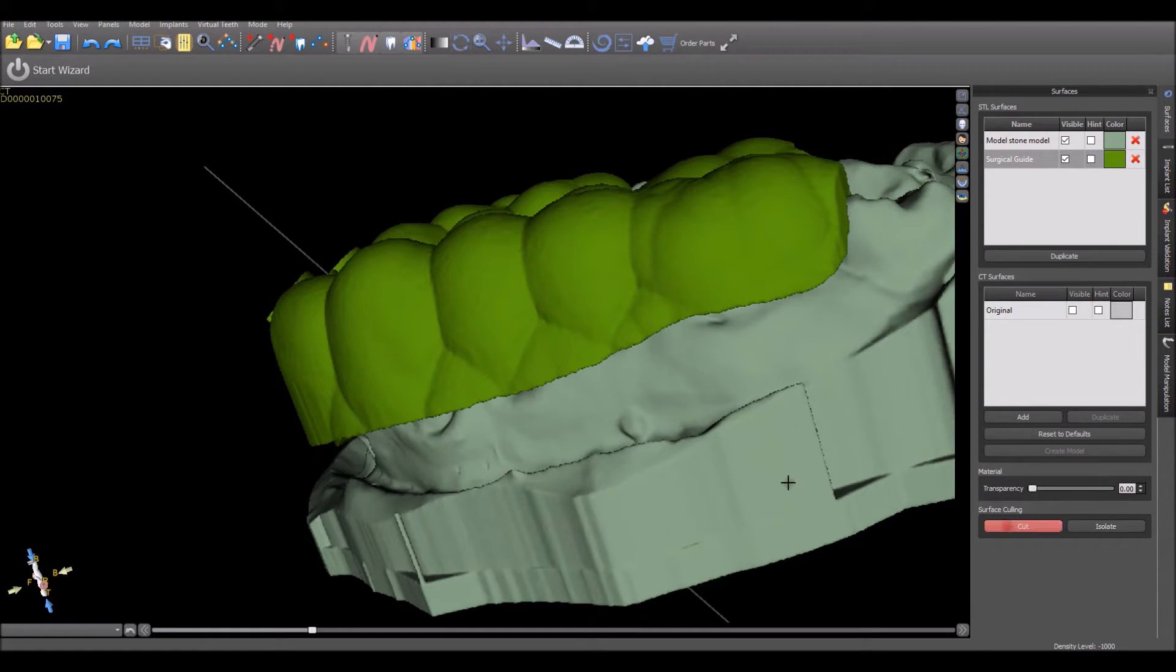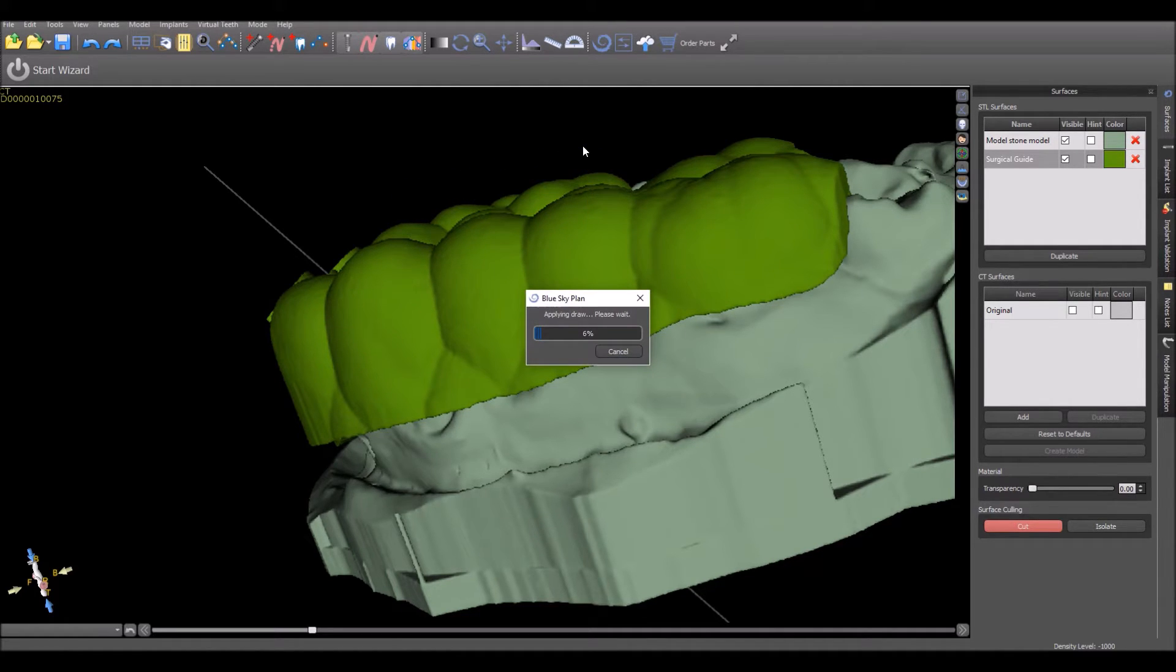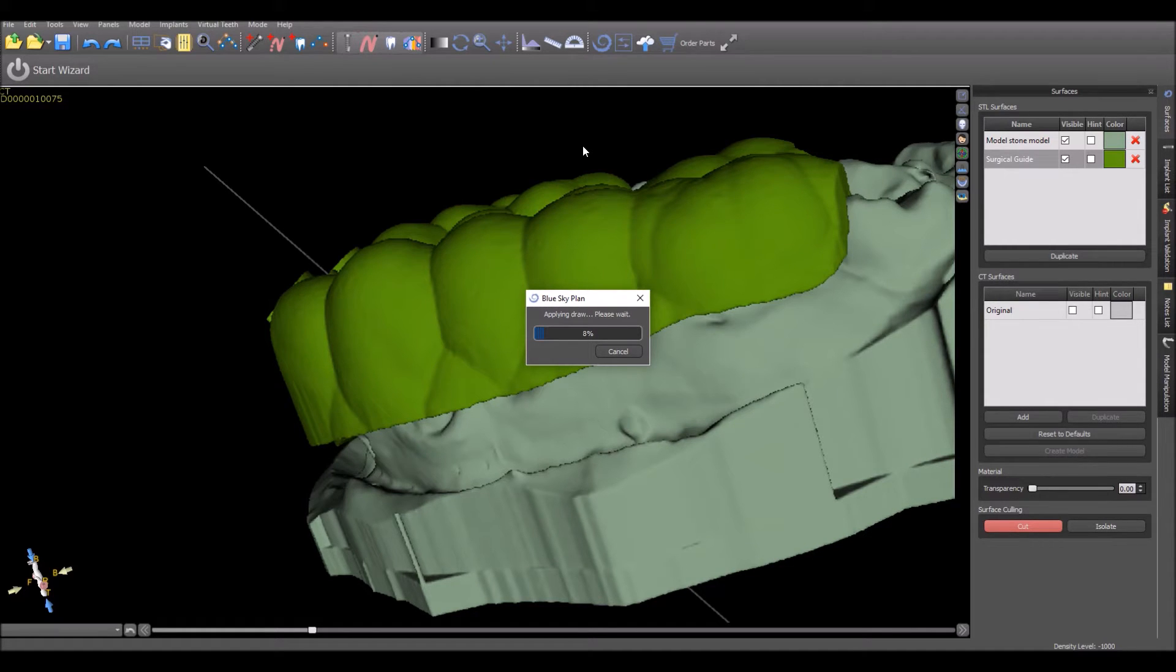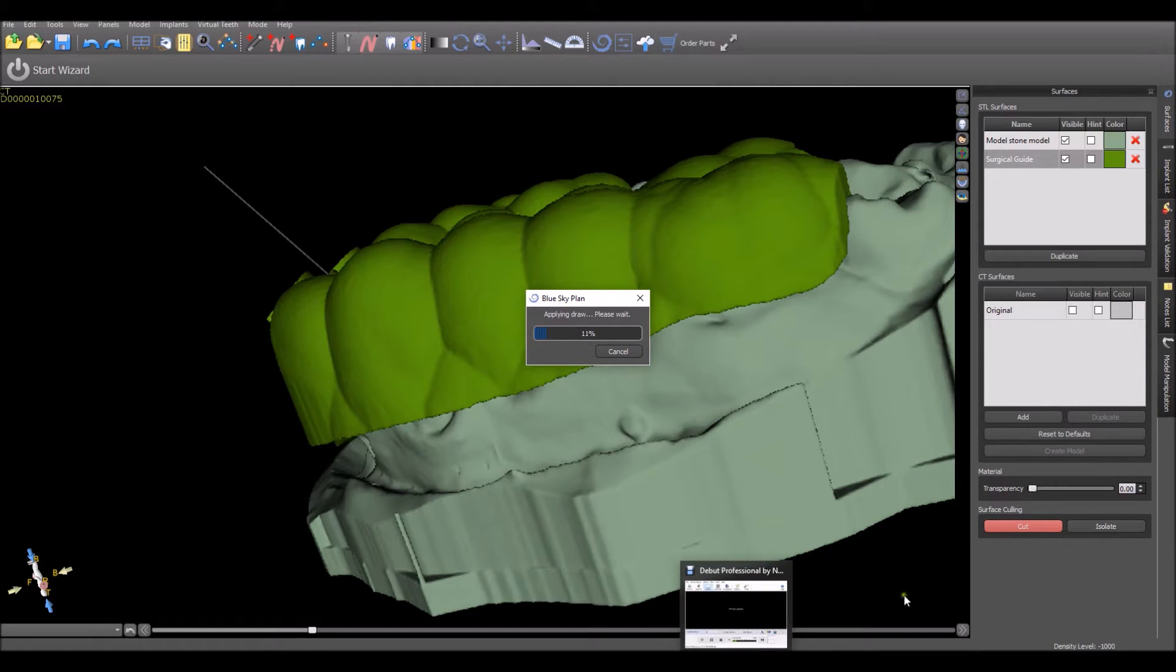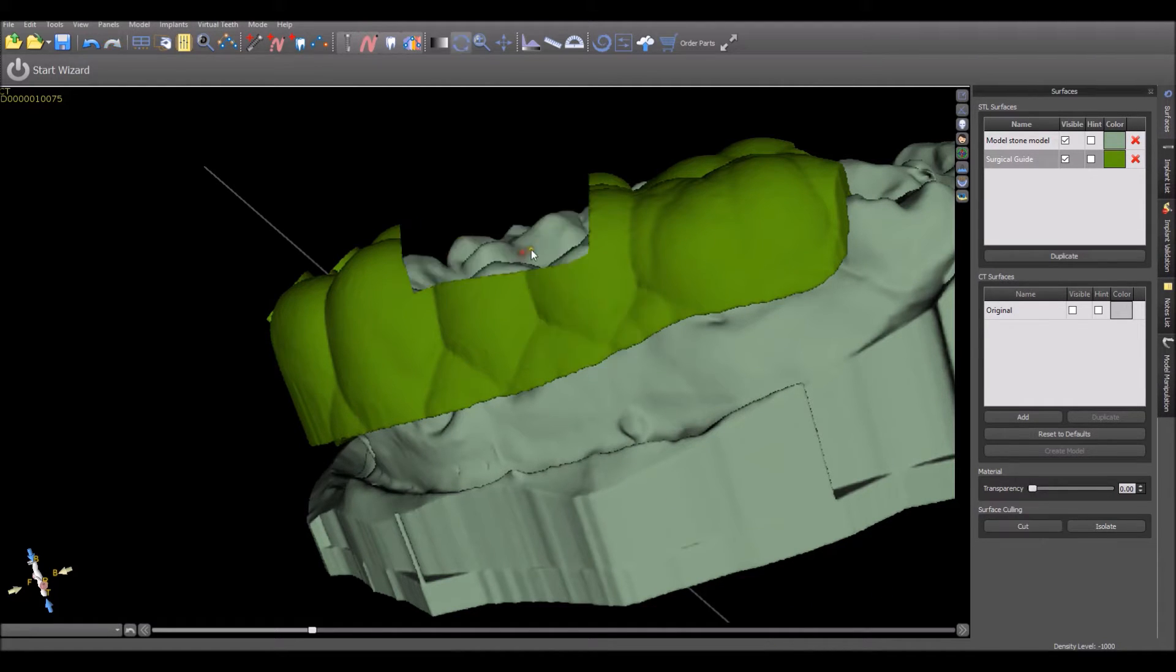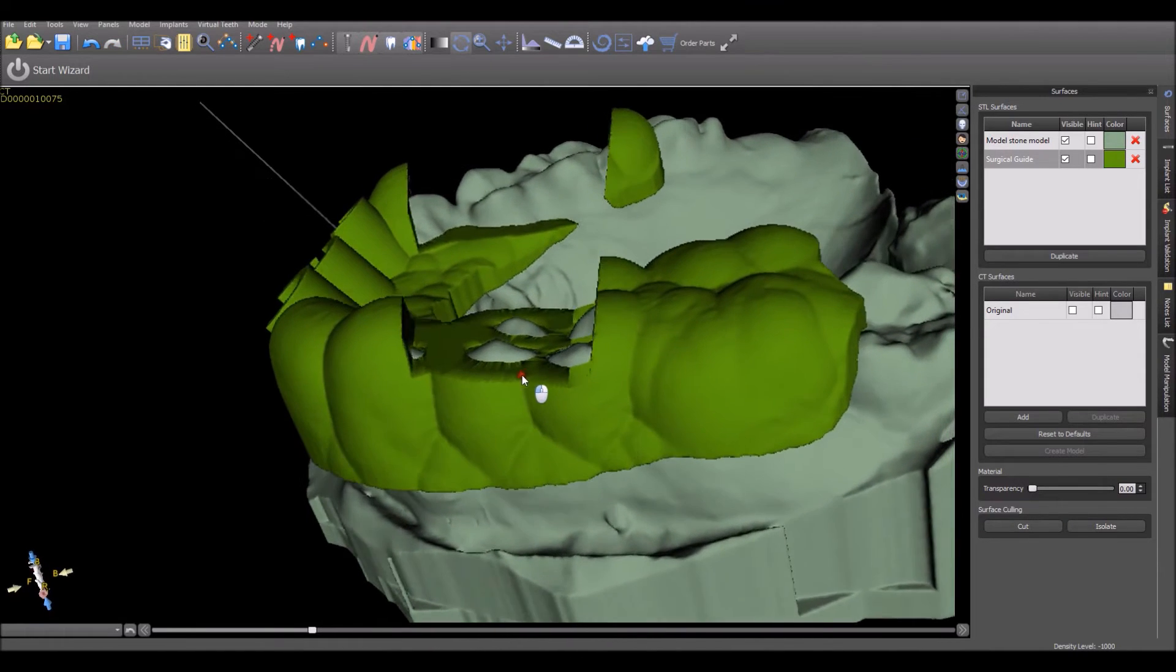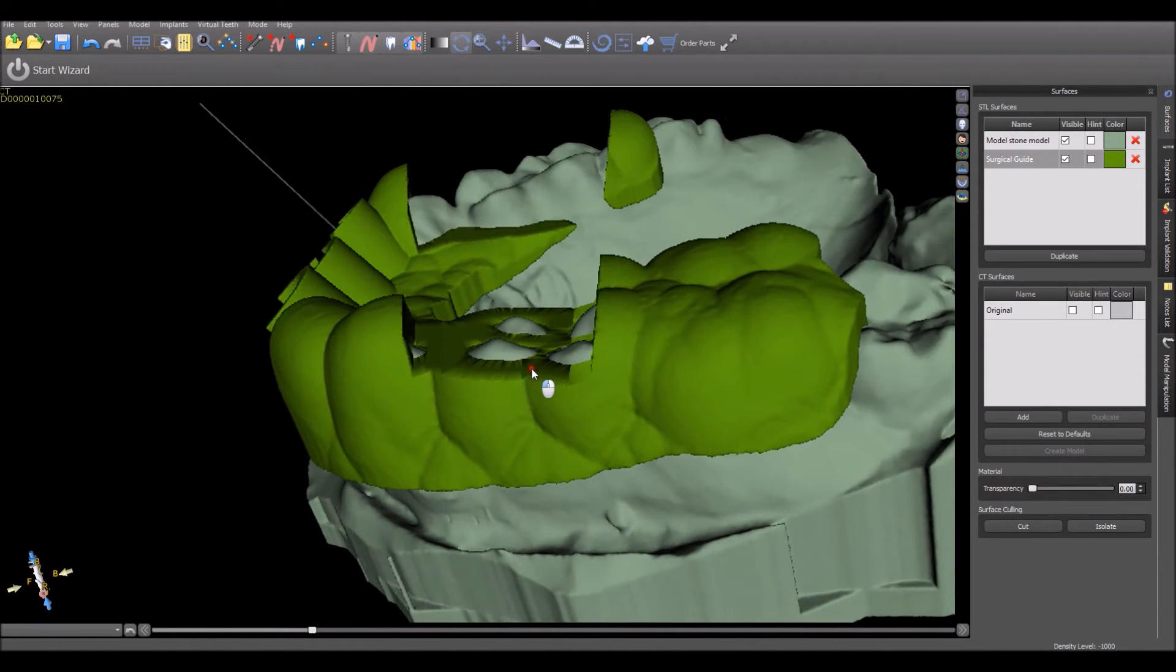If the surgical guide is cut, as I'm doing now, you'll see that we're going to encounter the problem that the part of the surgical guide that's behind the part we want to cut gets cut as well. Essentially, the cut tool will cut any part of the surface in the area that we just circled. And we can see the result of what we just did.